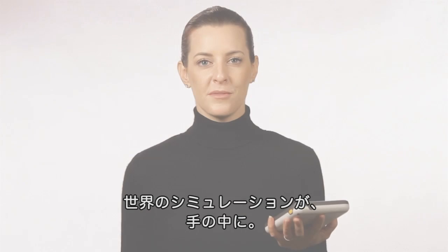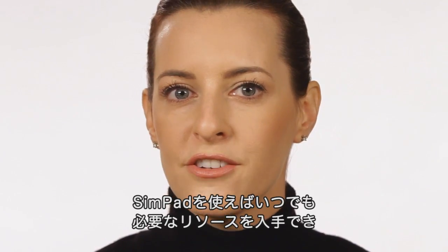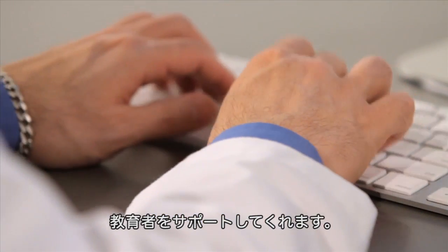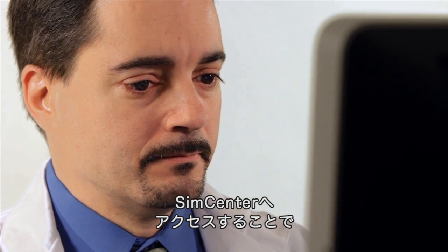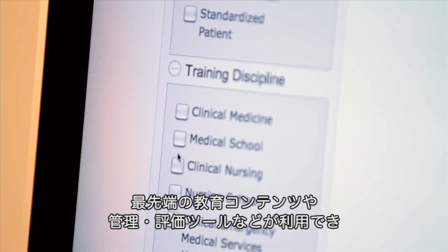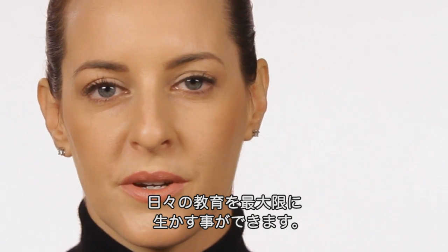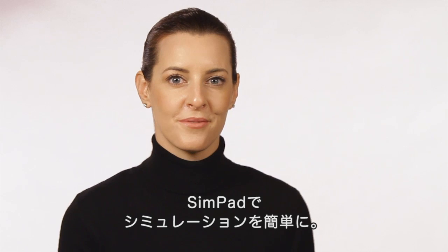A world of simulation in the palm of your hand. With SimPad, you'll have access to teaching and management resources to support your educational needs. SimPad offers access to SimCenter to provide validated simulation content, management tools, and assessment tools to get the most from every teaching experience. SimPad is truly making simulation easier.